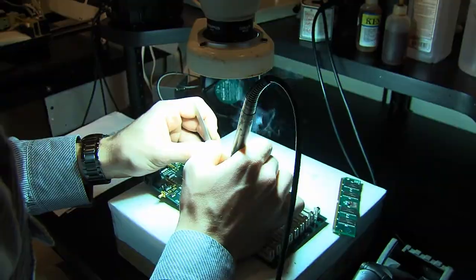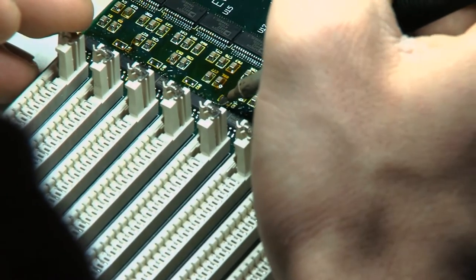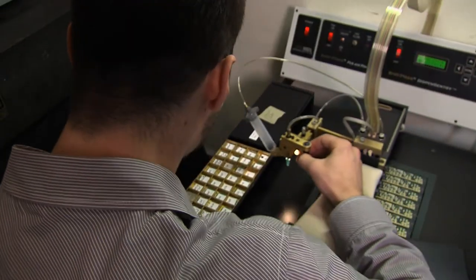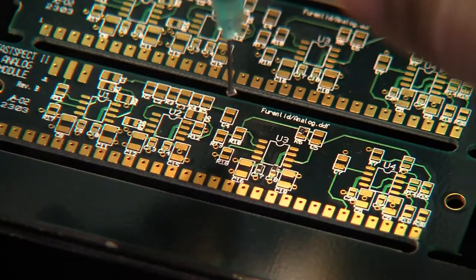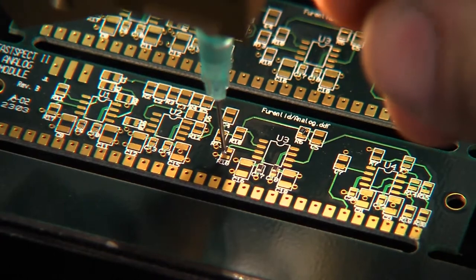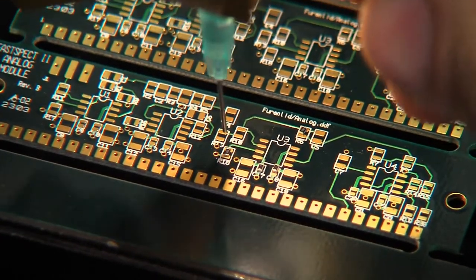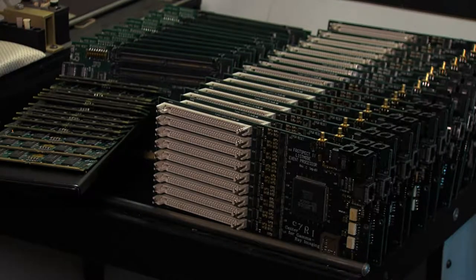CGRI maintains a strong electronics design and fabrication capability and builds its own Super List Mode acquisition systems in its surface-mount electronics shop. These include front-end boards for digitizing detector signals and back-end event buffers and PCI Express interface cards.